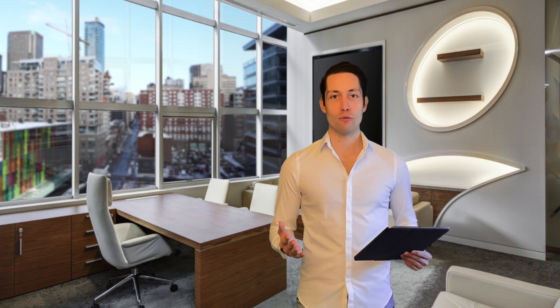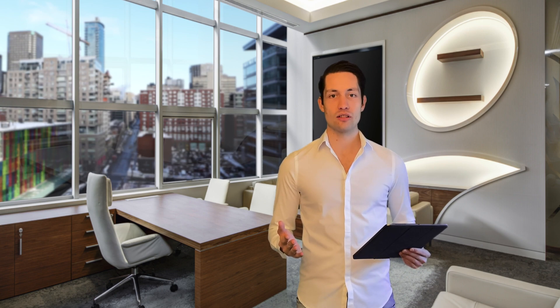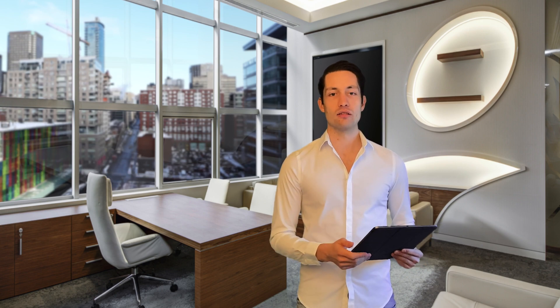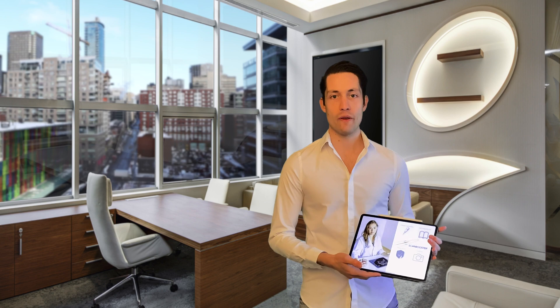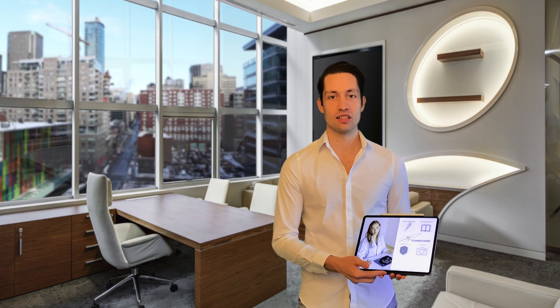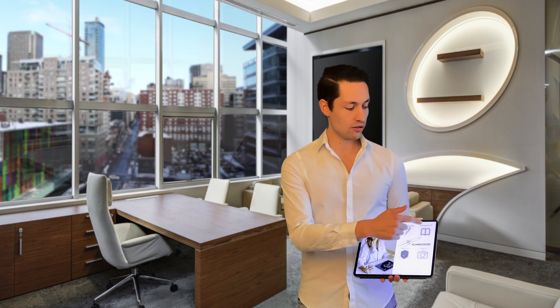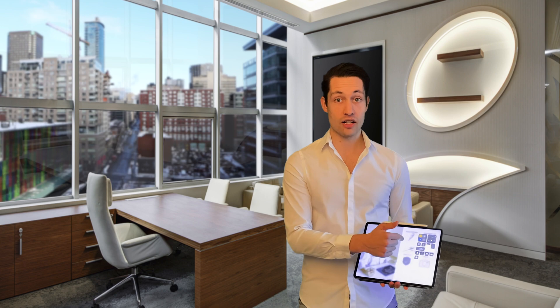Let's begin with the things you'll need as an instructor. First, you'll need an iPad or iPhone with the ScanBooster app running. Second, you'll of course need a working internet connection.